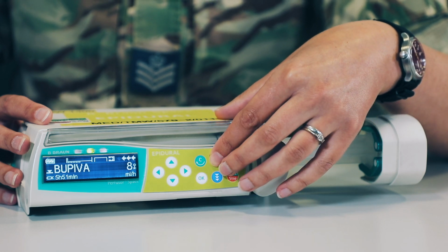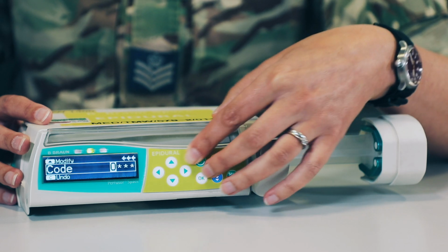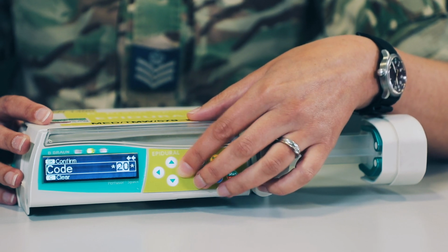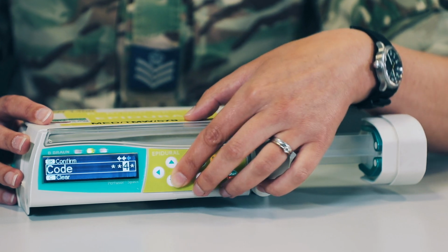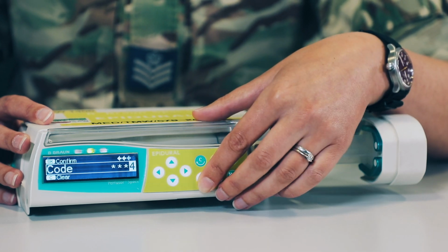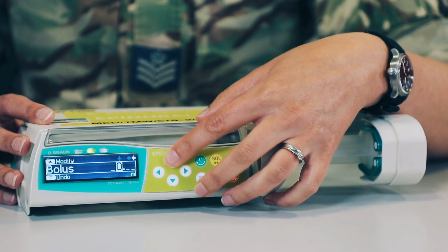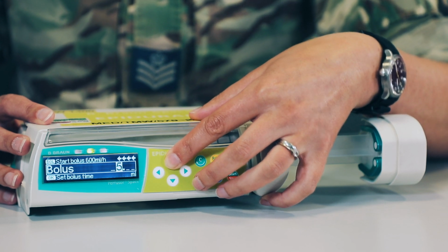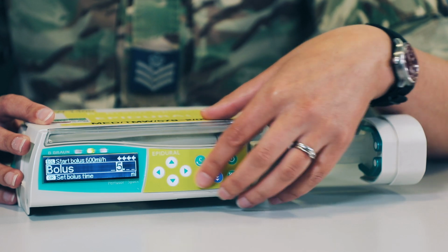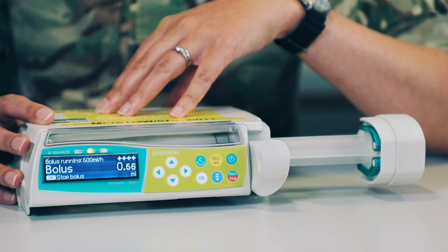So you may choose to administer a preset amount instead. To do that, press the bolus function. Again, put in that code because we've gone over our 20 seconds. Oh, gone over. So to set our preset amount, we're going to press the arrow facing in towards the screen, and we're going to select the bolus that we would like to give. So let's say we're delivering a 5 mil bolus, and we're going to press the bolus button to administer that 5 mils.